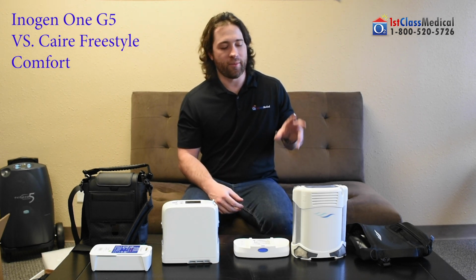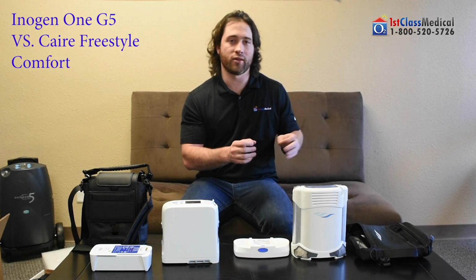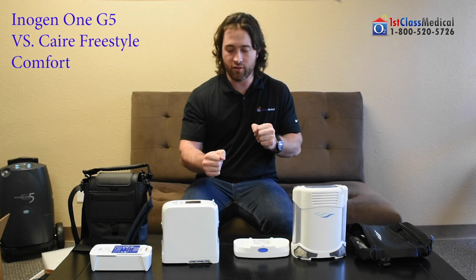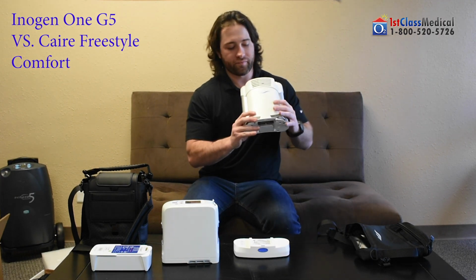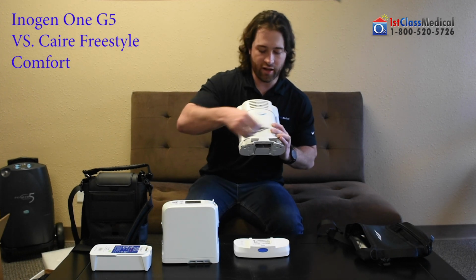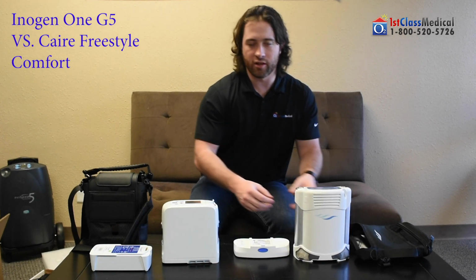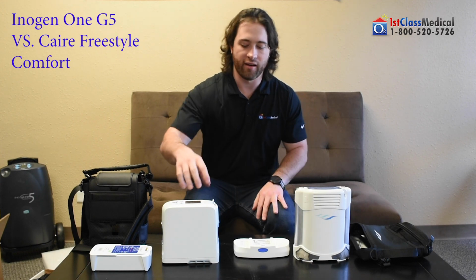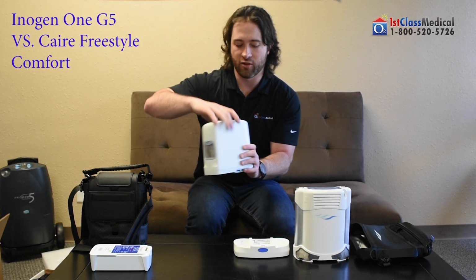So one good thing about the Caire machines is that you can always rely on it to be reliable and durable. It's an amazing unit. When looking at these two units, they're self-maintainable. The Caire Freestyle Comfort has a gross particle filter on the front. You'll have one here and one here that just clicks off and clicks right back on. All you need to do is hand wash that, air dry it about every week and a half to 2 weeks, and put it back on there. Inogen has the same concept here with the side here and the side here. Those are the gross particle filters.